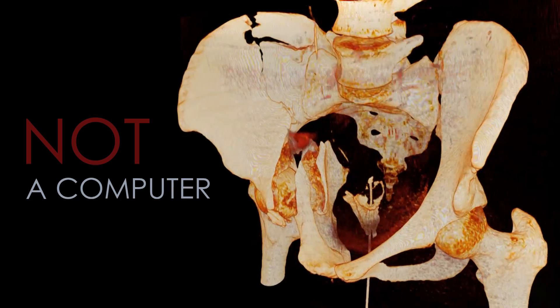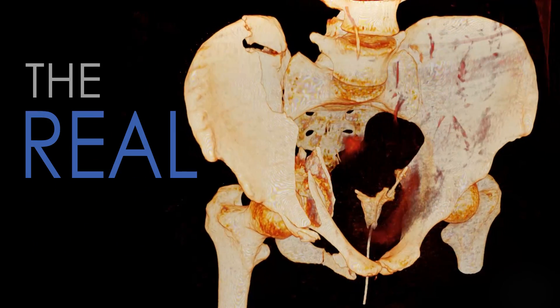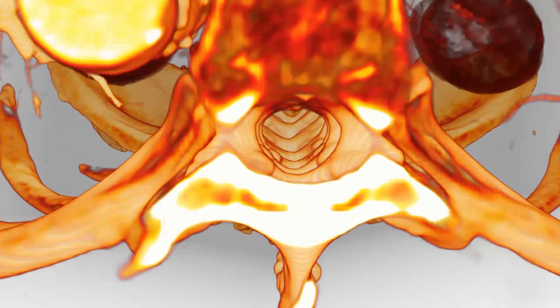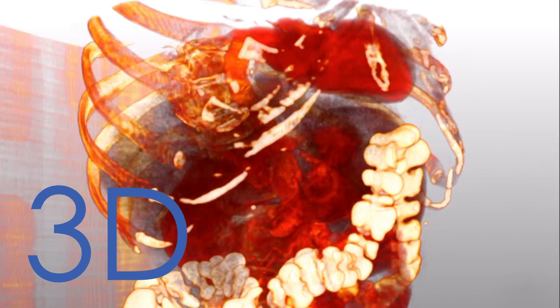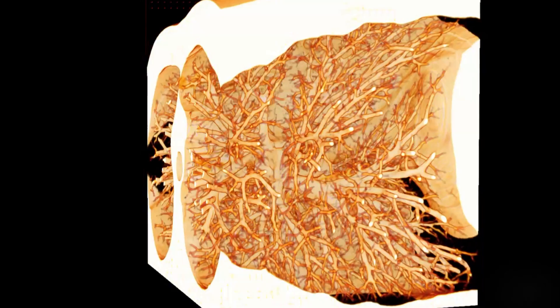What we're looking at is not a computer model, it's the real thing — the real patient. We have a piece of software called BodyViz, which is an amazing piece of software. It'll take MRI or CAT scan data and visualize it in 3D, so you can slice into it and filter out different tissue types and look for certain things.